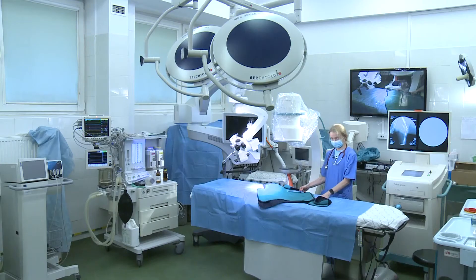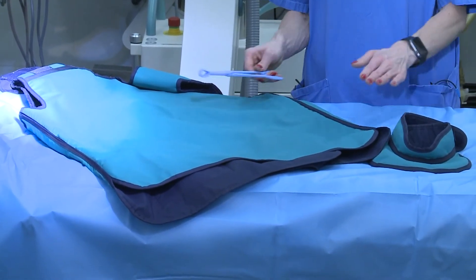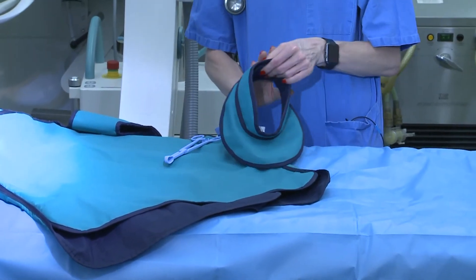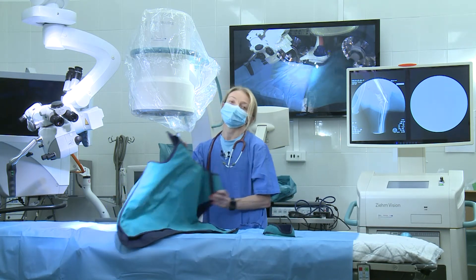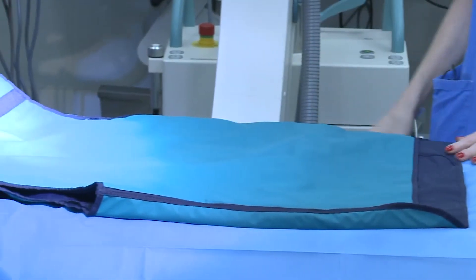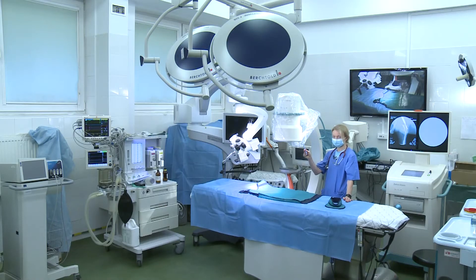Look here very carefully — this is something you have to remember first: your safety first. Not only your patient's, not only the owner who usually holds the patient, but also yours. These are the radio-protective shields which we use on our thyroid glands, as well as whole aprons which protect our bodies against X-ray.